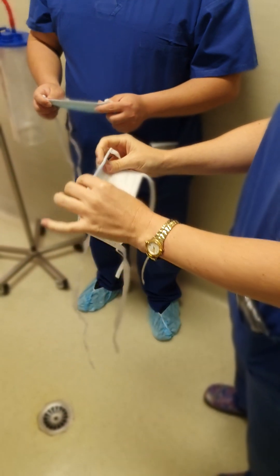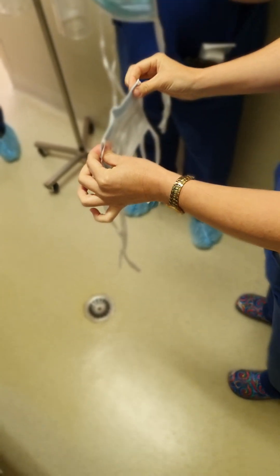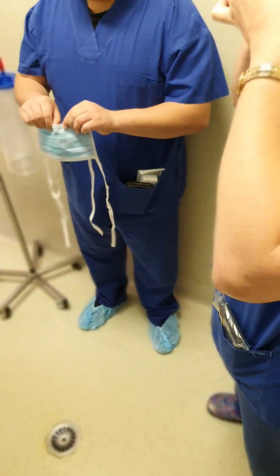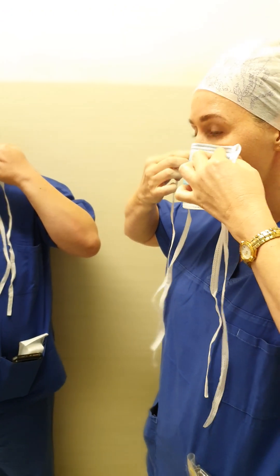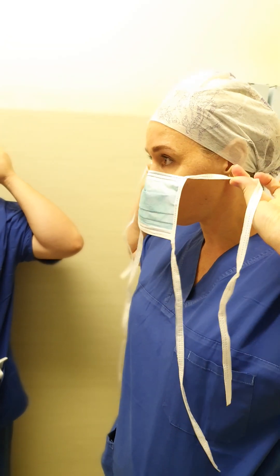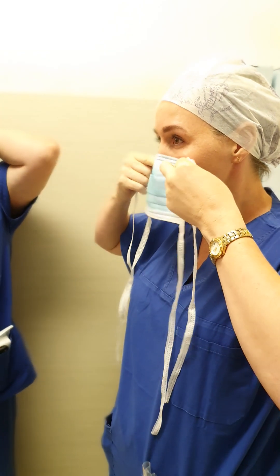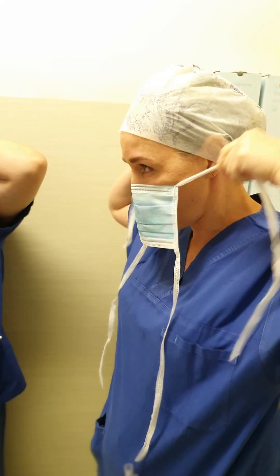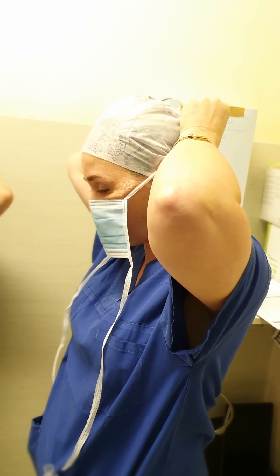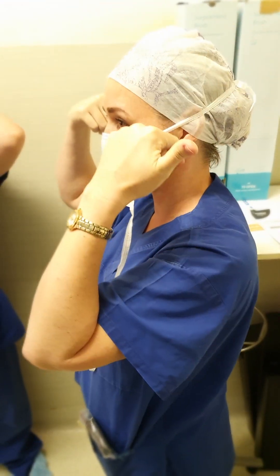So what you do — hold it by the sides, grab your foam section and make a little bend in the middle. Try and make it in the middle because your nose has got to go in there. Once we've done that, we're going to just fit it over our nose. Running your fingers along that, push it into your face. Then use your two fingers and slide it up — go in line with your cheekbones. I find that the most comfortable. Bring it up to the crown and tie a nice, not too firm knot — firm enough but not cutting off your circulation. If you wear a ponytail, I like to sit it on my ponytail so it doesn't slide back down.